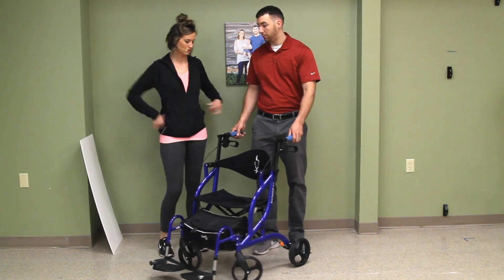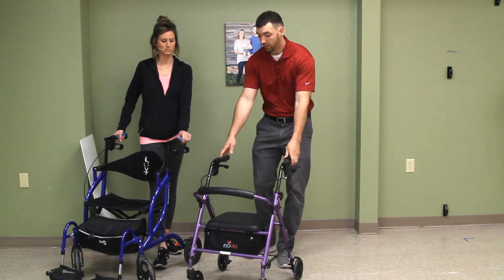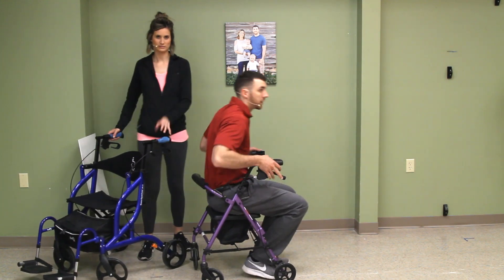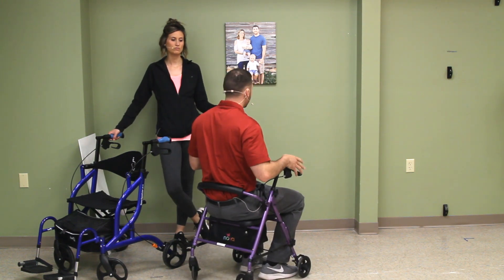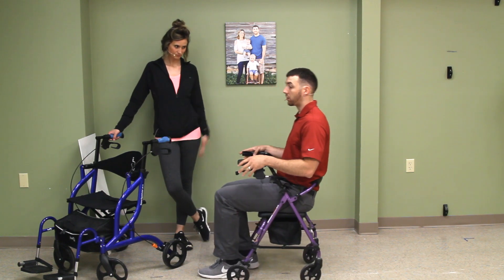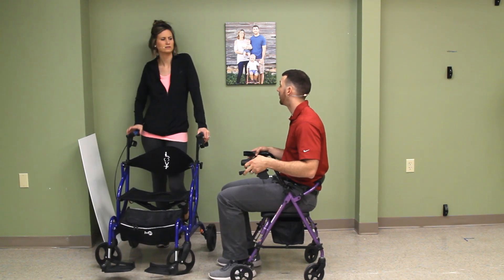We should describe what the difference is. This is a four-wheeled walker — a rollator. Walker, rollator, same thing. It's set real low here but it has a seat on it and you can sit and rest. Some people like to use it as a wheelchair and ask somebody to push them while sitting, but that's where you're going to back up, hit something — these aren't designed to roll around in. You're going to tip right over, head over tea kettles.